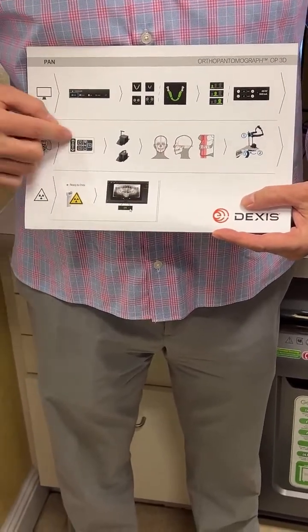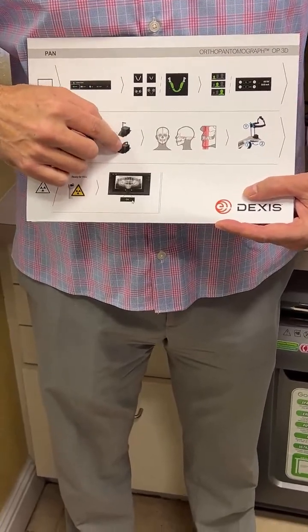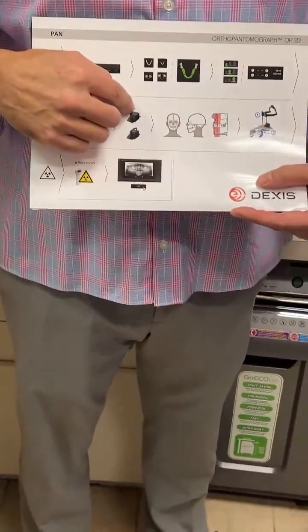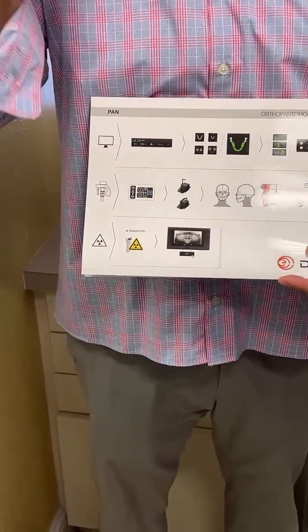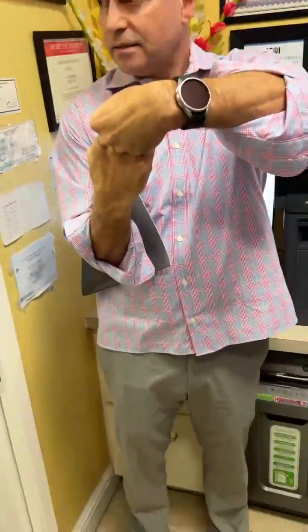Move it up and down. Use this bite stick. Now the chin support could be used for fully edentulous. You don't have to use this stick. And then they would take a cotton roll and place it in the mouth to separate upper and lower so the bone doesn't overlap. Because the last thing the doc is going to want to see is bone on bone like this overlap. It's going to drive them nuts. The cotton roll will separate them. You can do a posterior, anterior, but as long as the bone doesn't overlap.